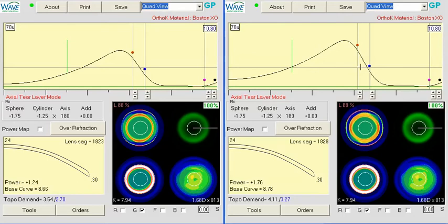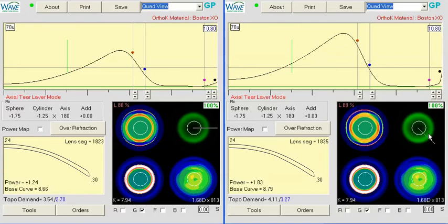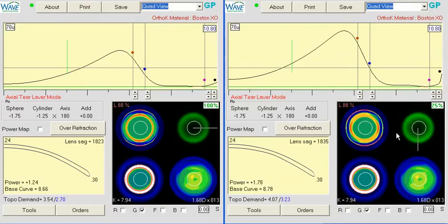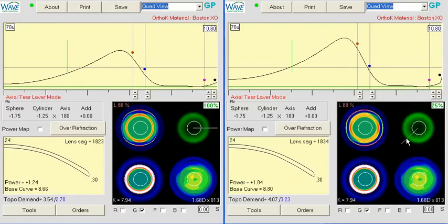Any time you change the power of the lens, even though we're in 100% mode, I always string through the meridians because sometimes I can get closer if we go to 25 and kind of adjust these manually. So, a little bit closer to 1.74 now. Same thing there.